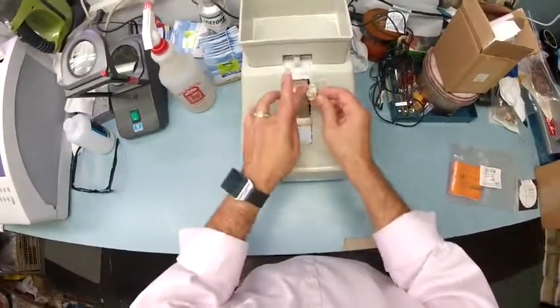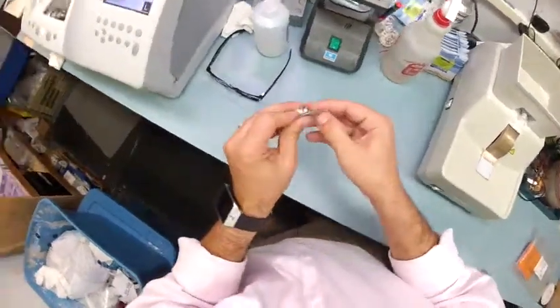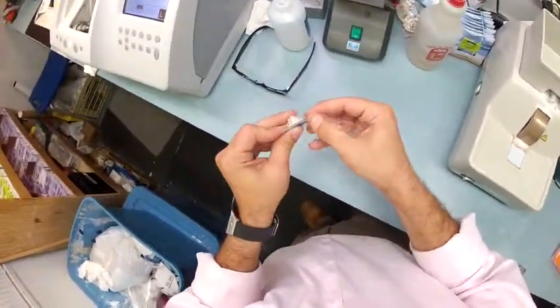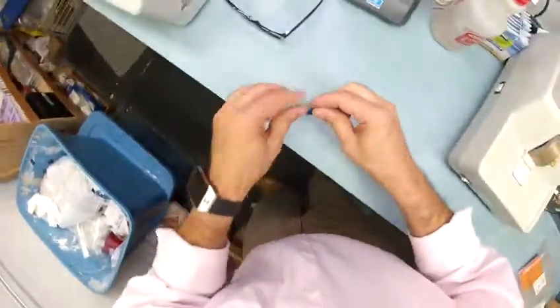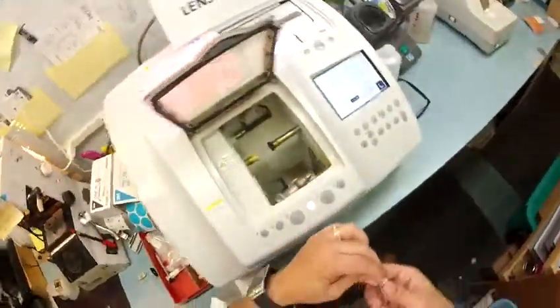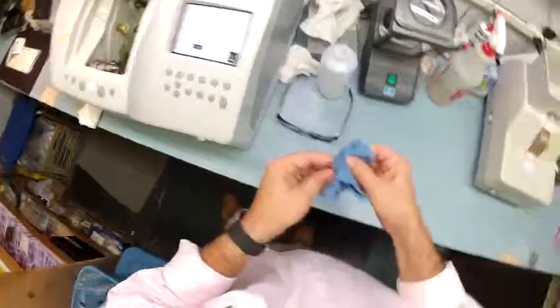Back to the hand stone, back to the safety bevel. And since you know what's coming — how about this, behind the back! Kids, look at that technique. Kids, you've got to stay in school — how many times do I have to tell you?